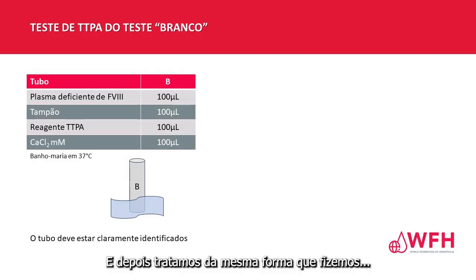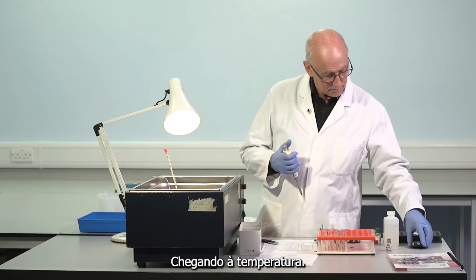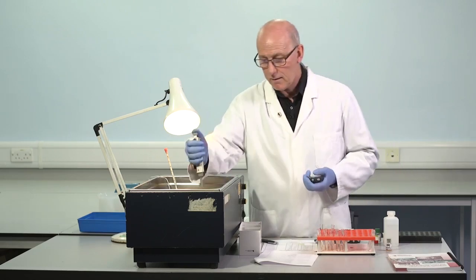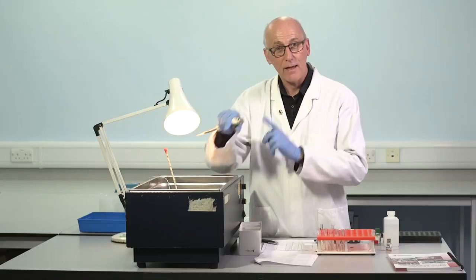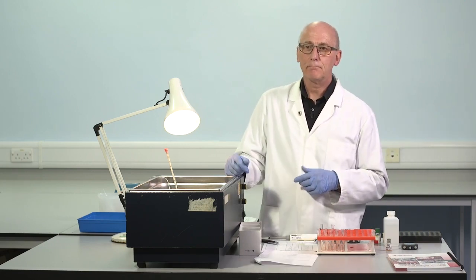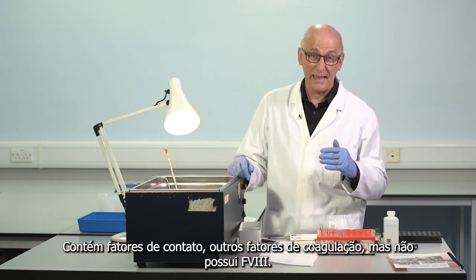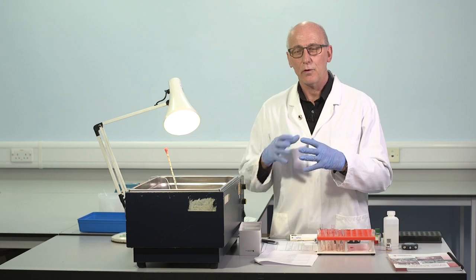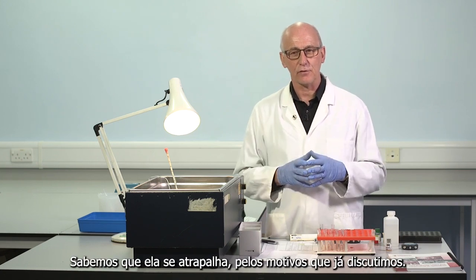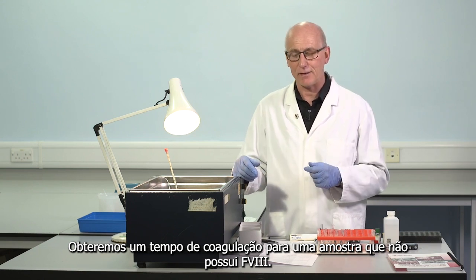This is warmed, and then we treat it in the same way as we did the dilutions of test, standard, QC, and so on. Coming up to temperature. Incubated for 3 minutes. So we've got the factor VIII deficient plasma. It contains contact factors, other clotting factors, but completely lacks factor VIII. We know that it clots for the reasons we've already discussed. We'll obtain a clotting time for a sample which completely lacks factor VIII.